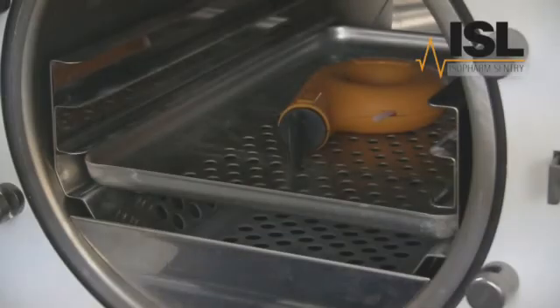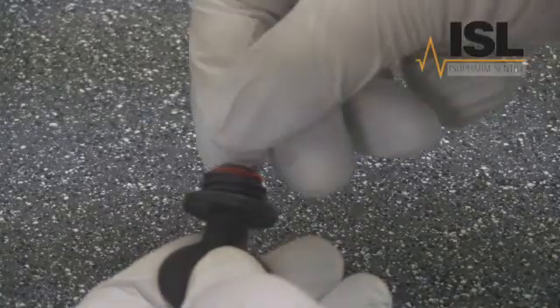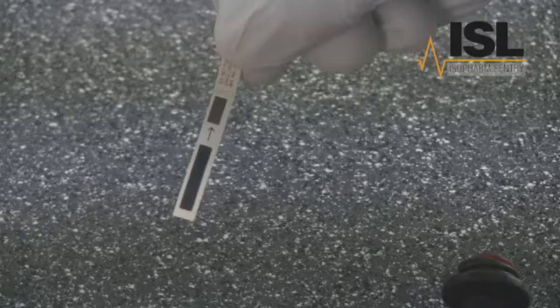Carefully remove the helix device — remember that it will be hot. Unscrew the cap and examine the test strip. In this example, the ink on the strip has uniformly changed from blue to black. This proves that the cycle removed all the air from the tube and pushed steam back in to contact the test strip. In this instance, the cycle has passed.